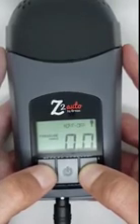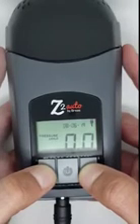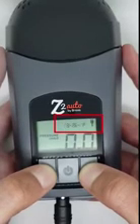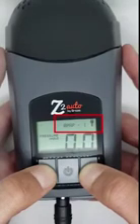First, you will plug in the device. Wait until it gets to the standby mode or 0.0 screen like you see here. When at the 0.0 screen, you will notice scrolling across the top right-hand corner the CPAP or APAP mode, Z-breathe setting, Bluetooth on/off if in auto start-stop feature, and the date and time.